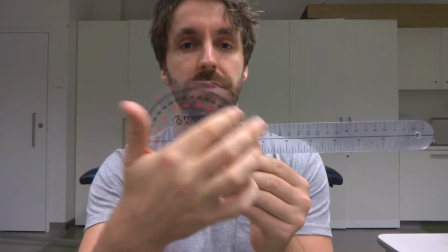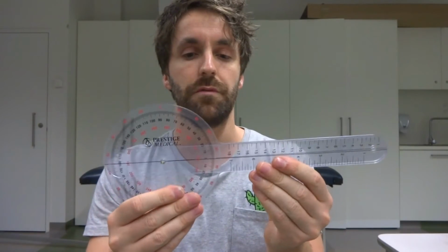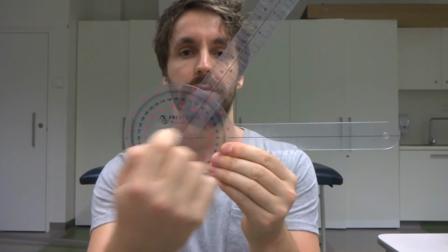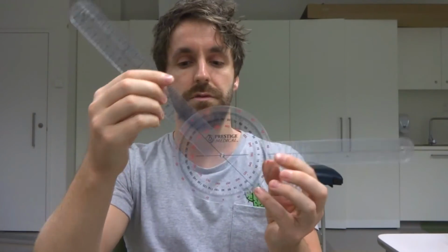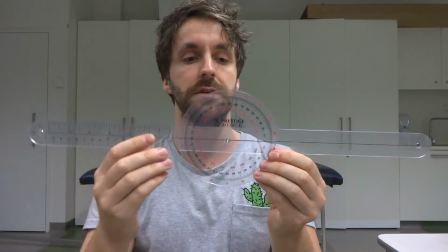If you can see on here, we have obviously some numbers, which is just degrees of measurement. So when we move the movable arm, like so, we get an angle here, okay? Now if you think back to high school and basic geometry, remember obviously a 90-degree angle is here. This would be all the way around to 180 degrees, and if we would take the arm all the way around, we'd get 360 degrees of rotation, okay?